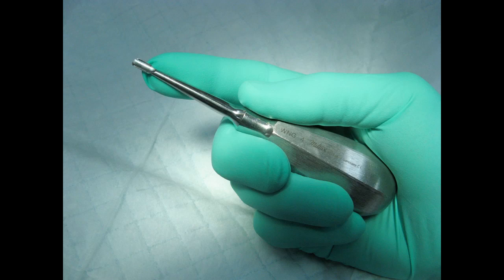These short-handled luxator elevators fit right into the palm of the hand, and consequently the finger extension up to the tip is quite natural because it's shorter. It allows you not to have to use a lot of grip pressure on the handle portion, and ergonomically allows it to sit in the palm of the hand, so any forward or apical pressure doesn't require squeezing the instrument — it rests at the base of the palm, and you can use that to your advantage from a physics standpoint.